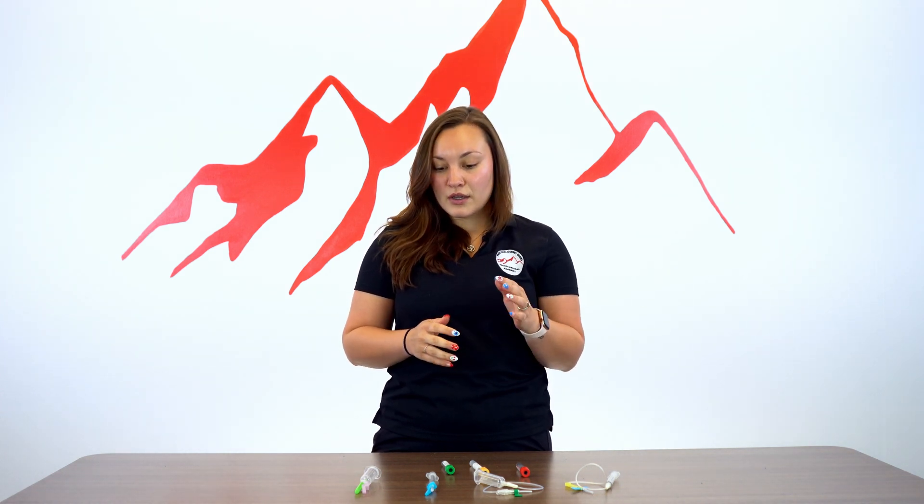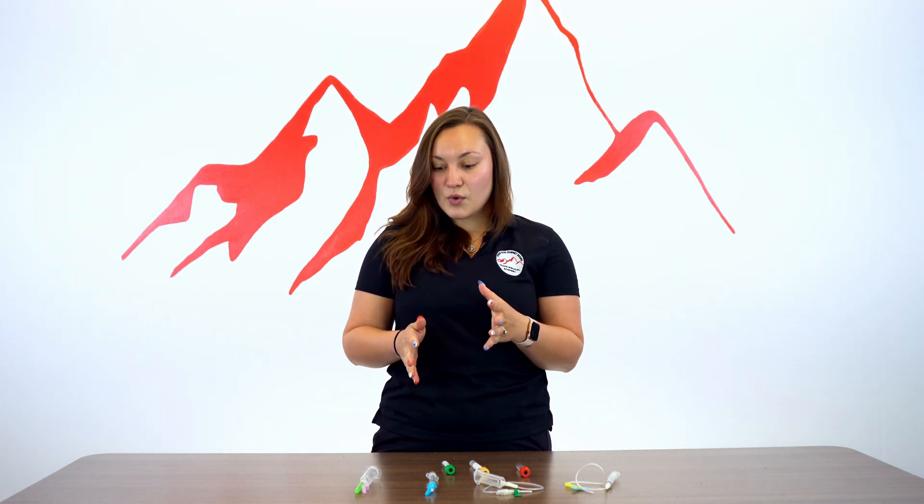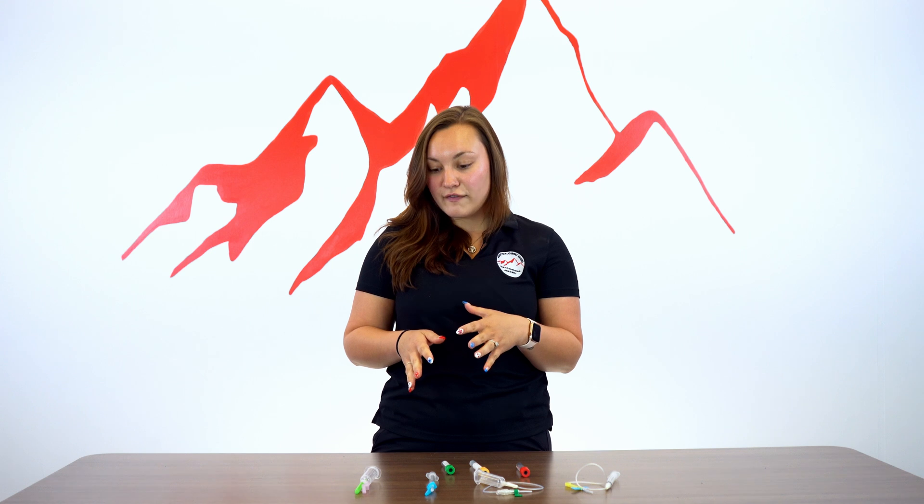Hi, my name is Samantha. I'm a phlebotomy instructor here at Idaho Medical Academy. Today we are going to talk about the different needle types, when we use them, and what we use them for.